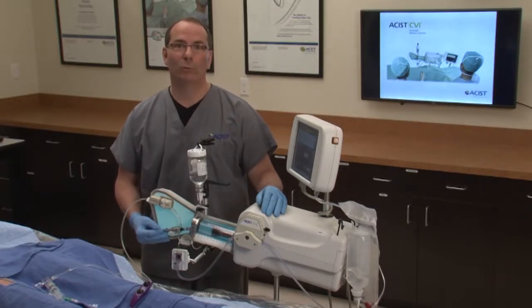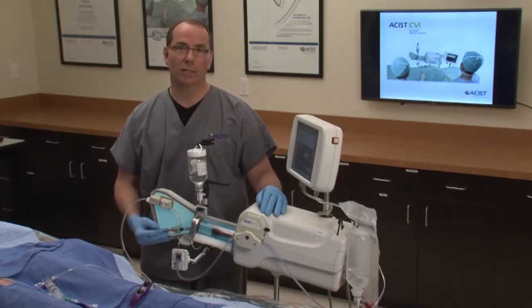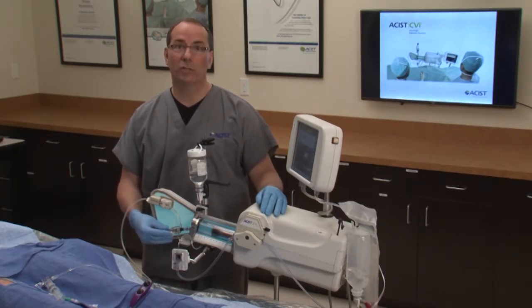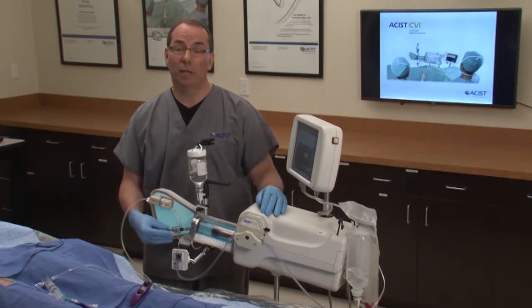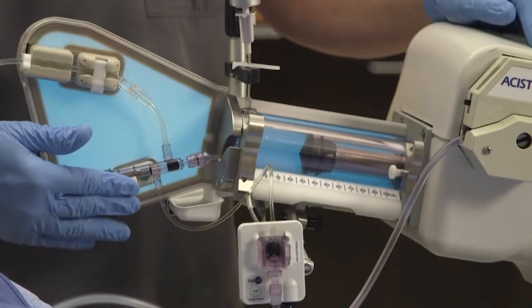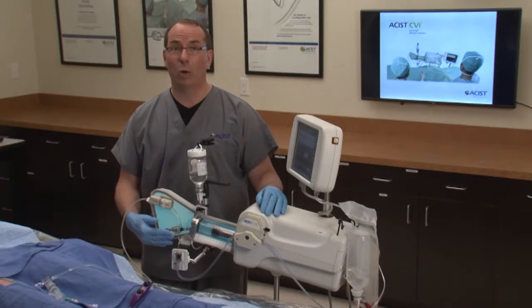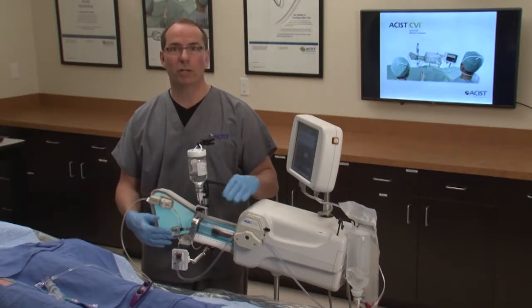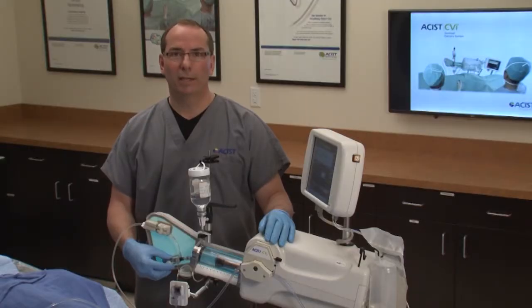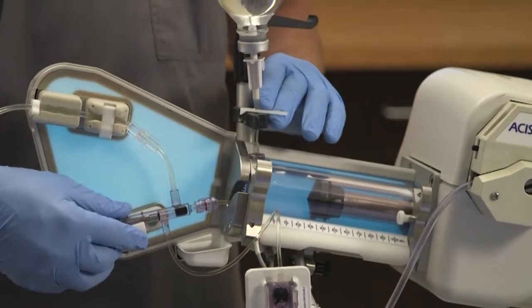If you receive a manifold valve open alert message after an injection is complete, it means that the valve is out of position due to a couple of reasons. The manifold has not been properly placed in the holder. The manifold remains in an open position due to pressure from the syringe ram. And lastly, the contrast tubing slide clamp could be closed.